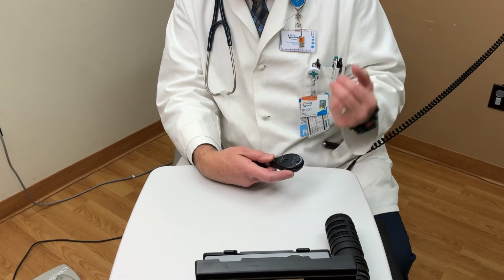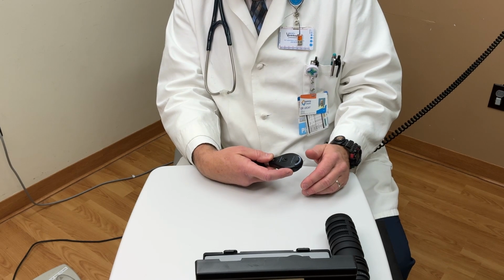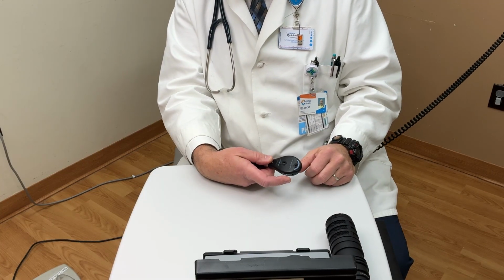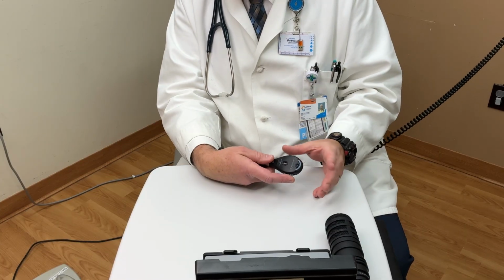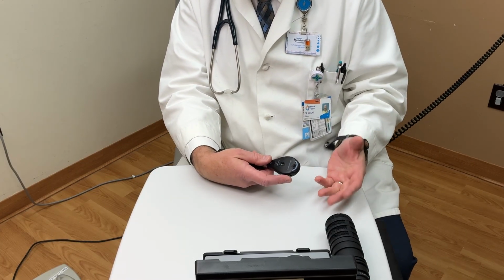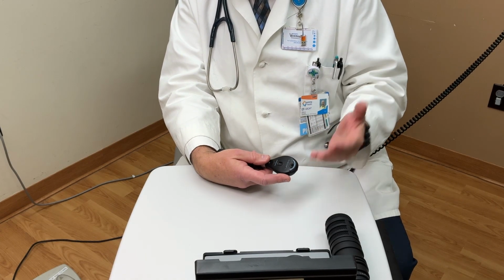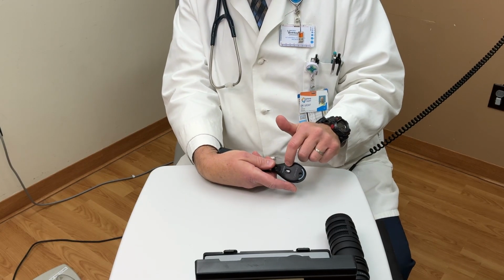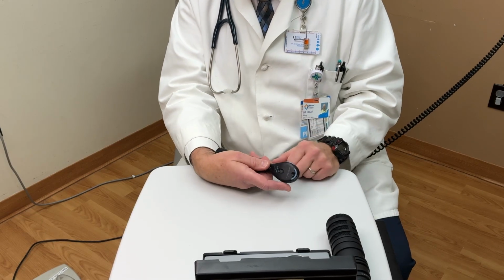And let's suppose you have a -3 and the patient has a -2. I'm going to ask you, think on your own, what color and number lens would you dial in? Most of my guys have long since forgotten how to add negative numbers, but the point is, you add negative numbers, the number becomes more negative. So -3 plus -2 is -5. So if you're examining a patient with a -2 deficit and you're a -3, you would plug in a red 5 before you begin the exam. Not that you can't adjust it after that, but that's how you determine what the lenses are.